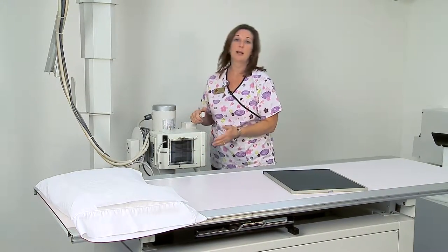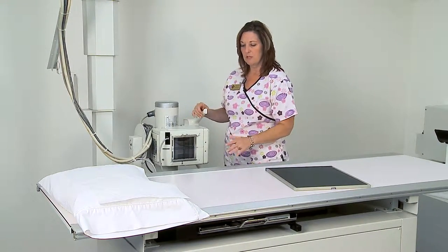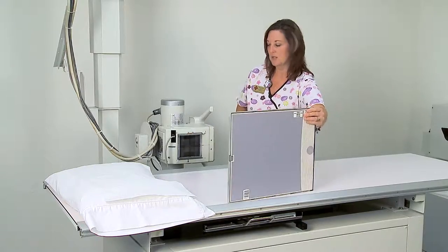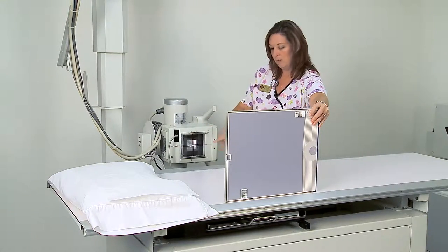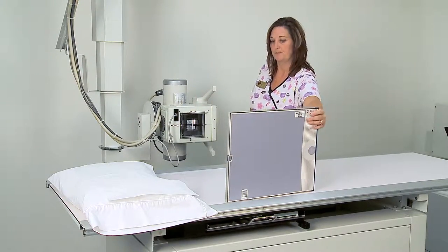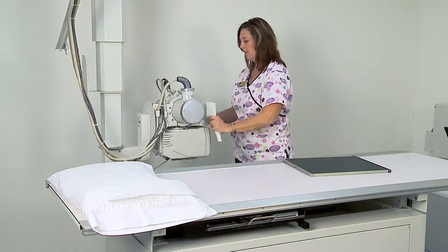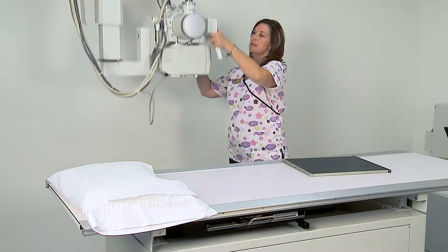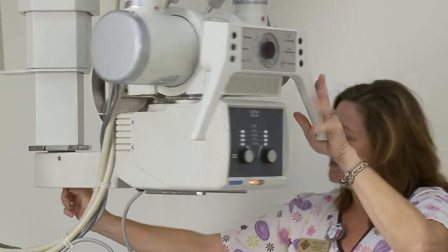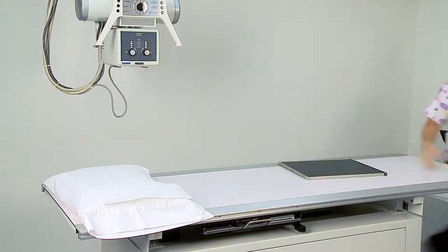This is very beneficial for trauma x-rays, cross-table C-spines, cross-table lumbar spines, and even extremity work when the patient is unable to move accordingly. We would put the cassette on the opposite side of the table and align the tube to the cassette with the appropriate light field. To move the tube back, just depress the pin, bring it back around, and you are able to continue your work on the appropriate side of the table.